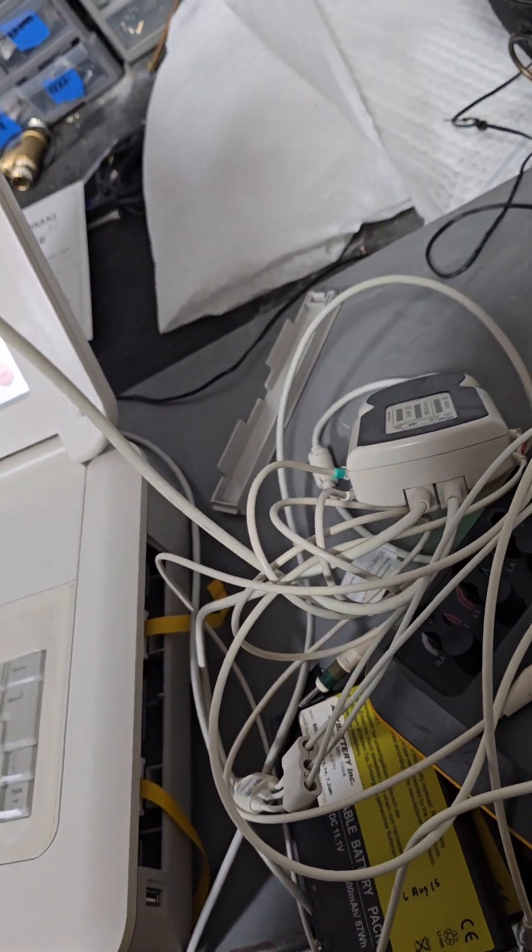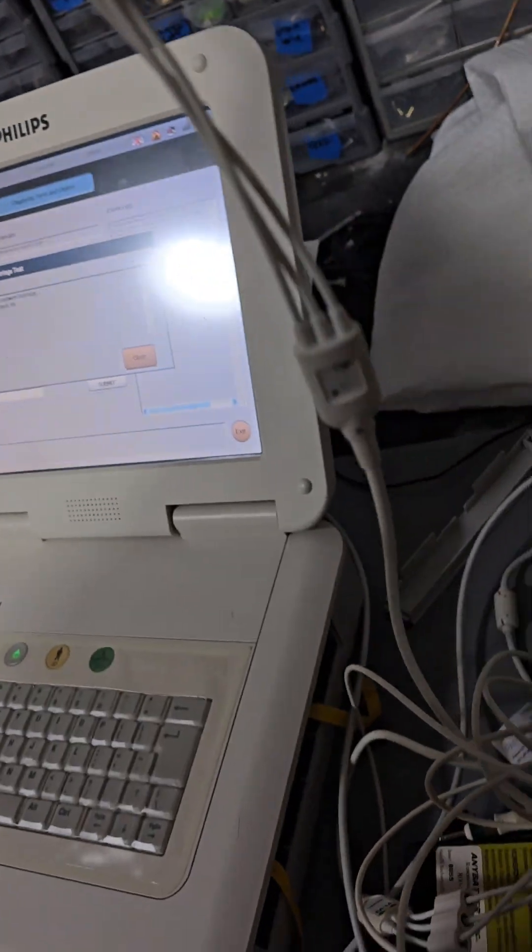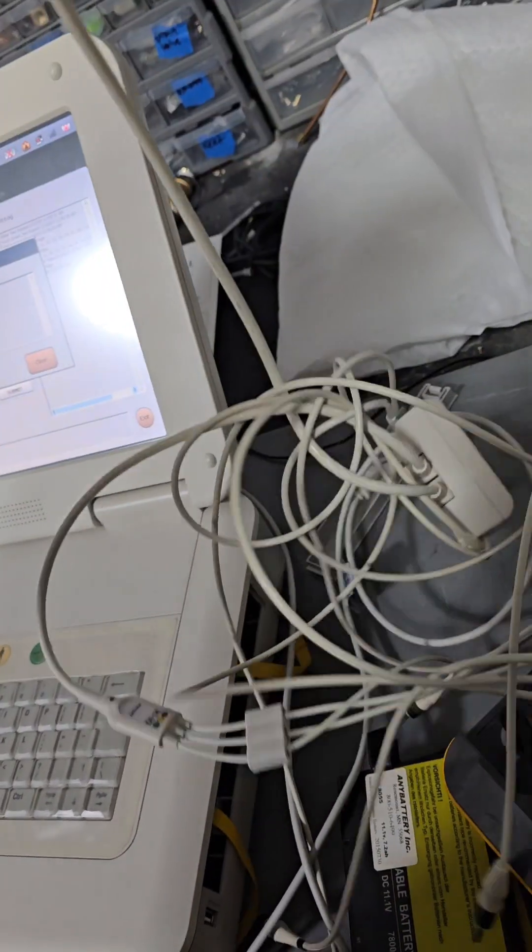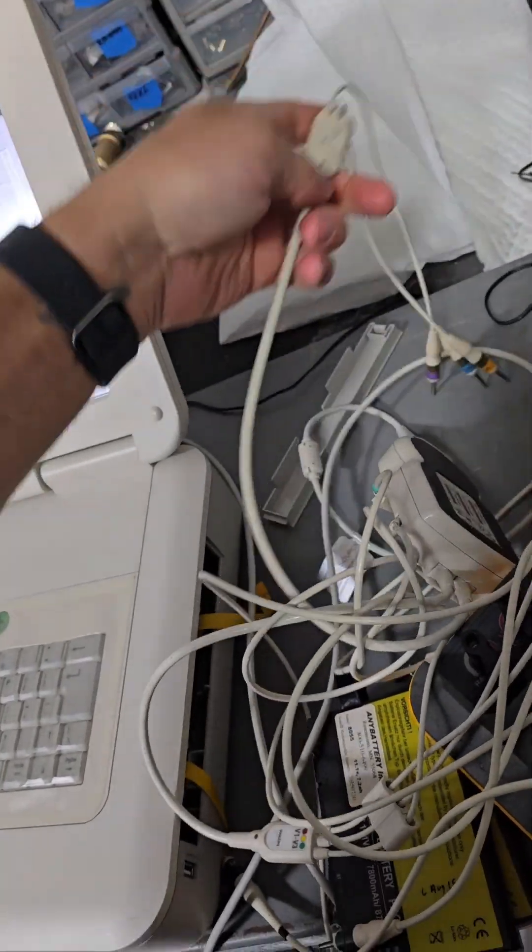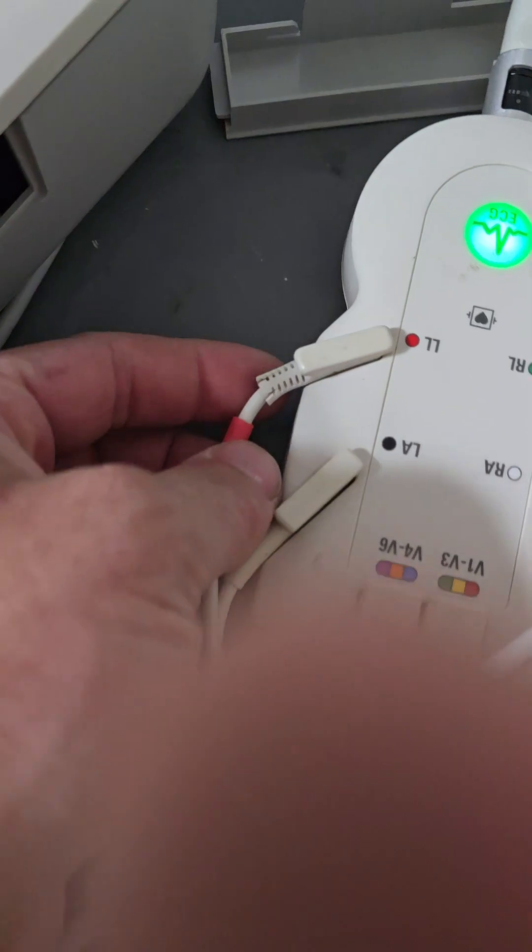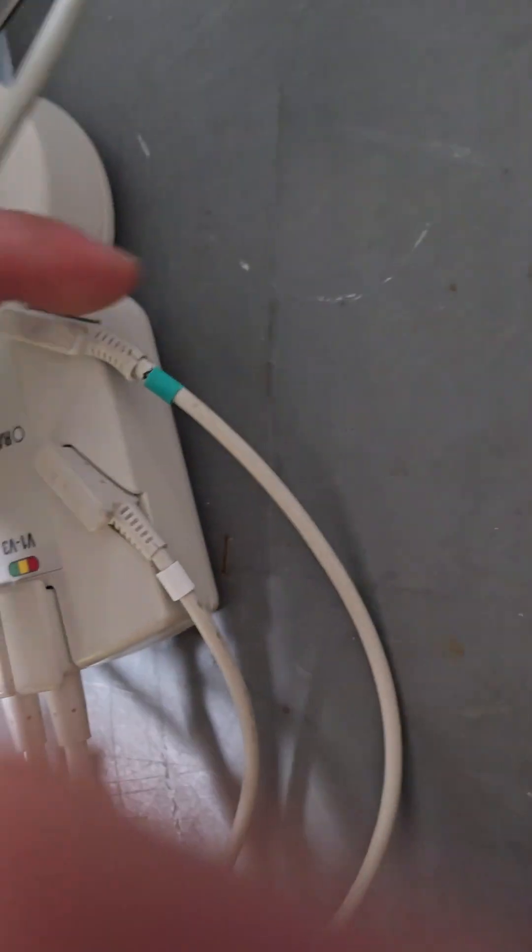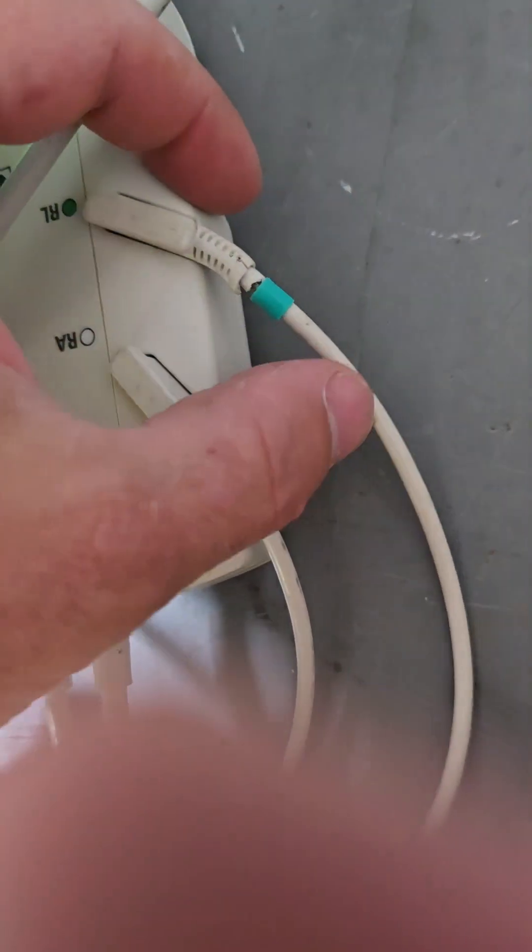I don't know. Well, it's telling me V6 is a problem. So, this whole setup's got to be replaced. Let's take a new visual. It looks like LL to be replaced. RL definitely needs to be replaced.